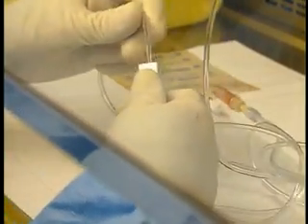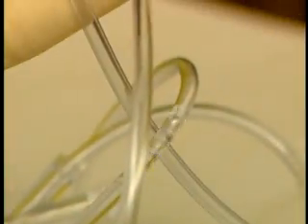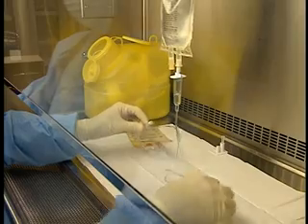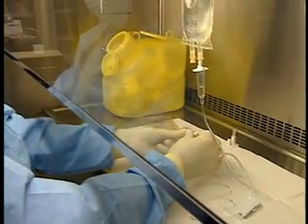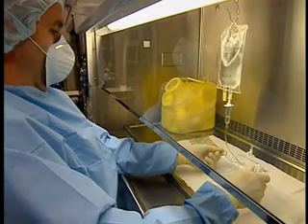Eliminate air bubbles and form a head of fluid. Gradually move the fluid towards the solution bag by unclamping the tubing. Make sure there is no air trapped under the clamp. Slow the flow close to the Y injection ports to completely fill them with fluid while flicking with your fingers above the Y. Clamp the tubing if necessary to move any remaining air bubbles up to the fluid head. Let the fluid flow into the needle and make a last check to ensure there are no air bubbles in the tubing.